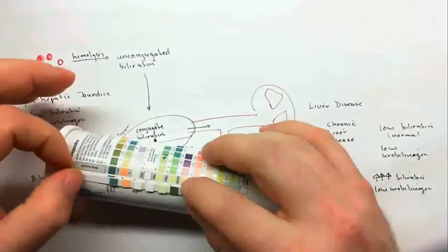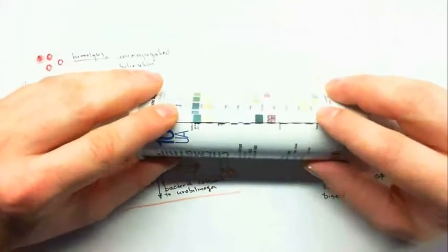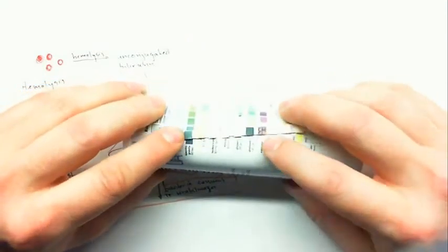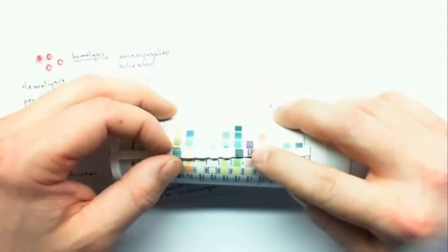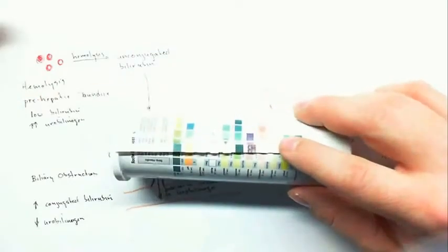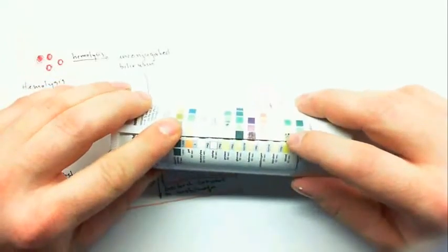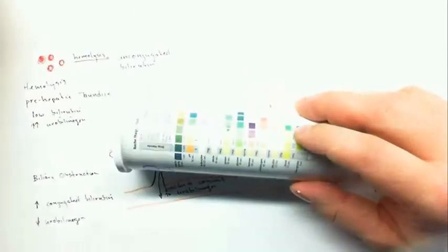And admittedly, I've kind of doctored these, so they might not be real clear. This first one has a very low specific gravity. It also has glucose present, and it also has ketones present. So if there's glucose, ketones, and a low specific gravity, this is a pretty good indication of diabetes mellitus. Now if we took that same strip and we added blood, often in diabetes there's kidney damage, and that can lead to blood in the urine, and that's a problem in late stage diabetes.